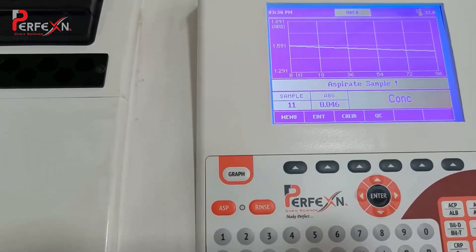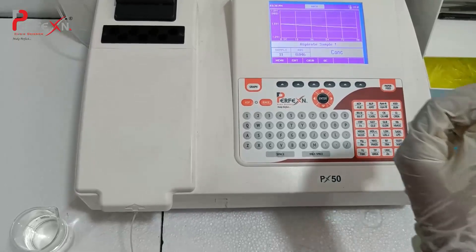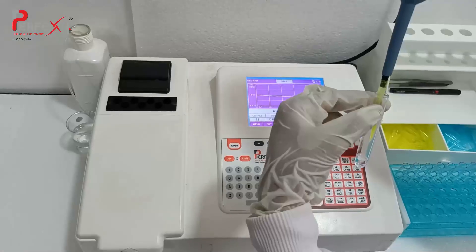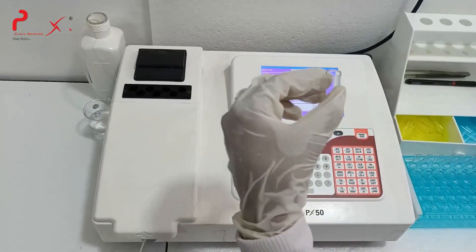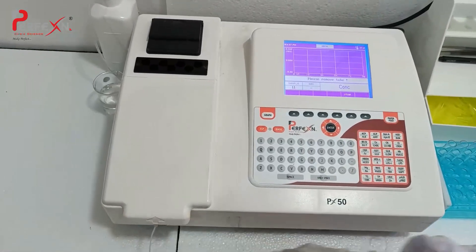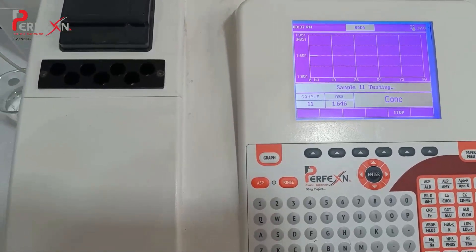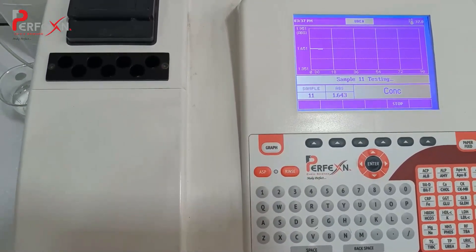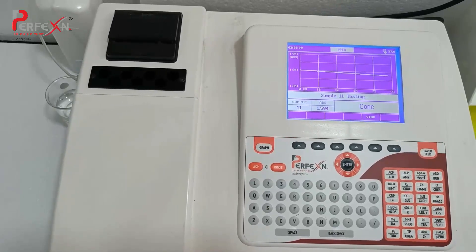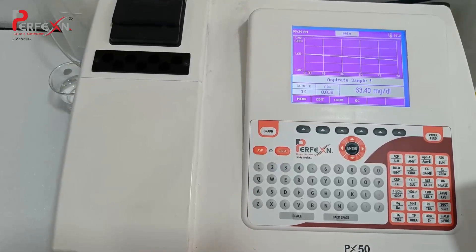Now we will estimate for the sample. Previously I mentioned I have taken the Biorect control sample of level 1. Here you will see level 1 Biorect control. Mix in the working solution of R1 and R2. Mix well and aspirate immediately. Note the initial rate — it is 1.651 — and the graph is in decreasing phase. Here on the screen you will see the result is 33.40.